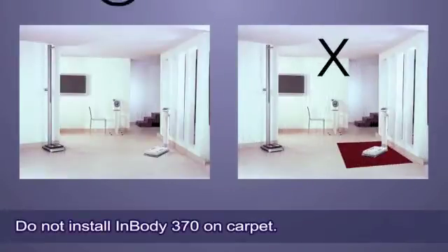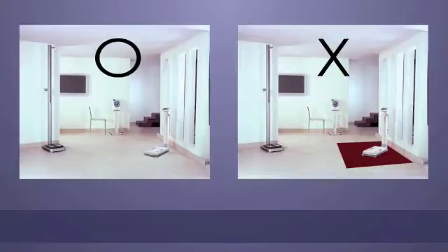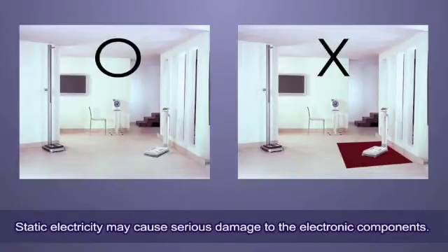Do not install InBody 370 on carpet. Static electricity may cause serious damage to the electronic components.